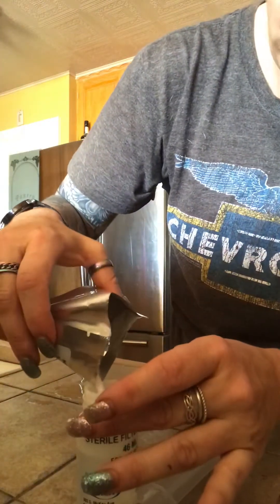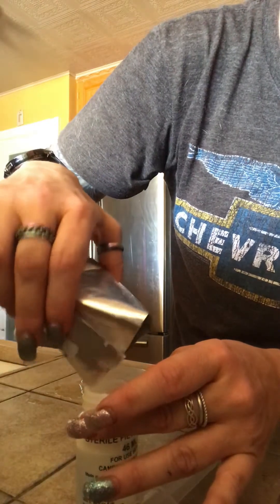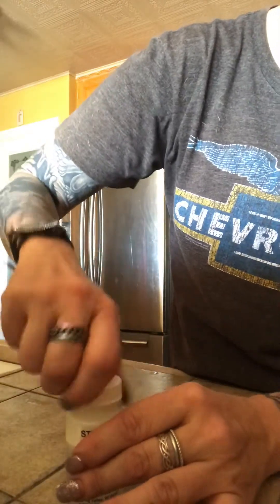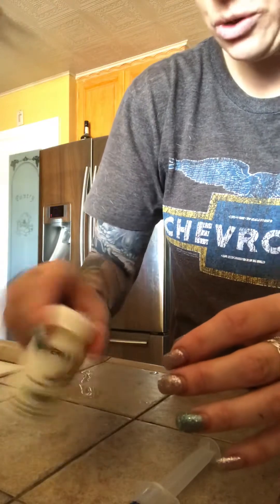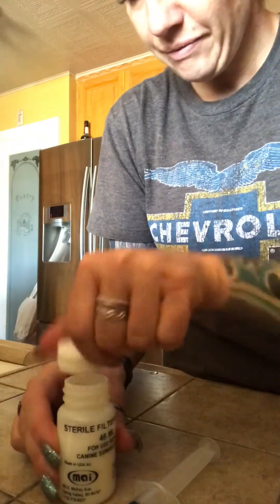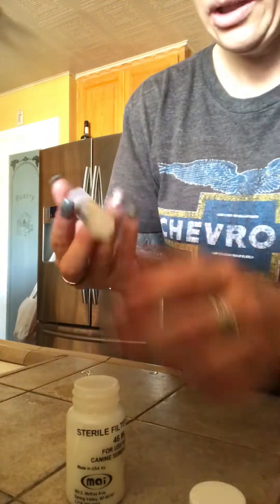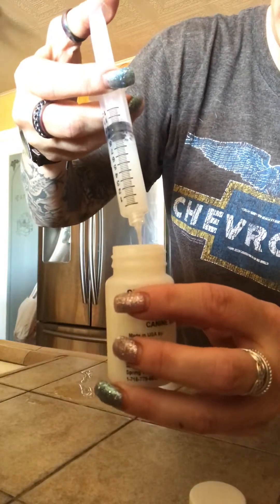It's going to be 98 by the time the extender goes in. I put the extender in, close the top, I mix it — I don't know if you're supposed to, but I always have live sperm so I'm not super worried about it. Open it back up, sometimes it has bubbles, and I just slowly add this right to the top.